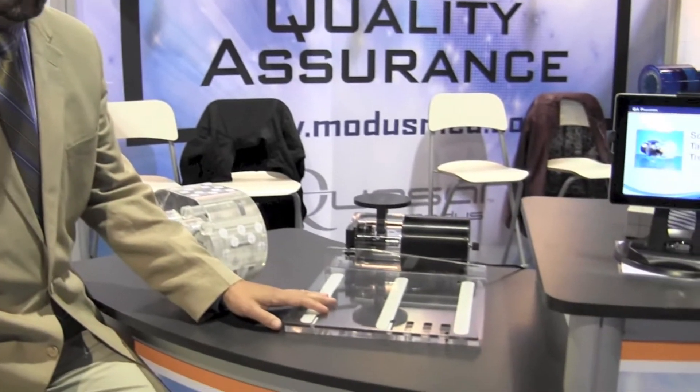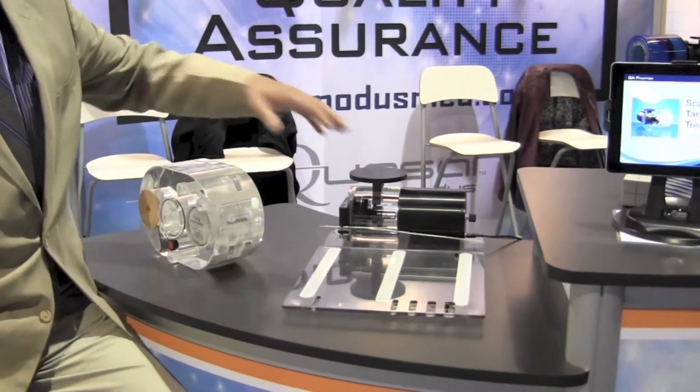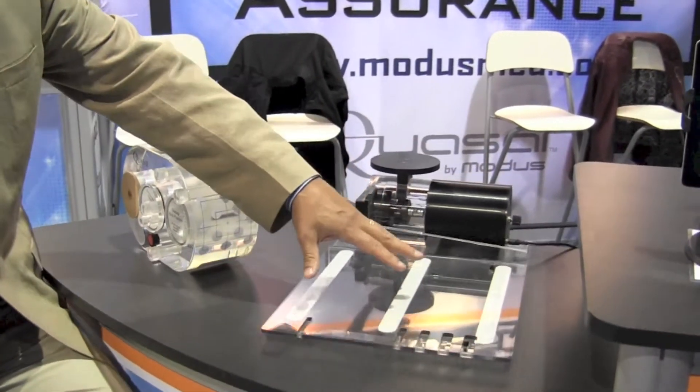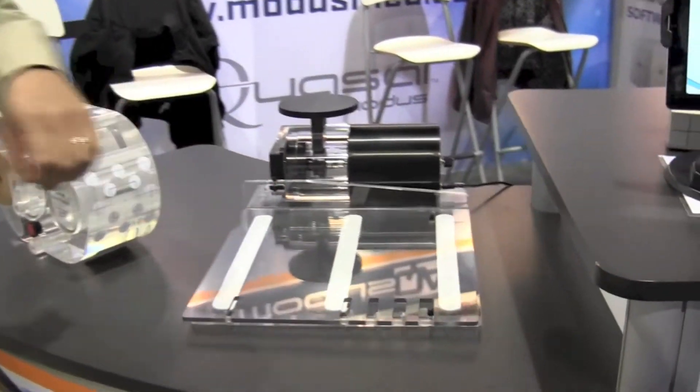Hi, I'm John Miller at Modus Medical, here on the show floor at Astro. This is the respiratory motion platform. As you can see, the platform is moving with a steady-state motion.